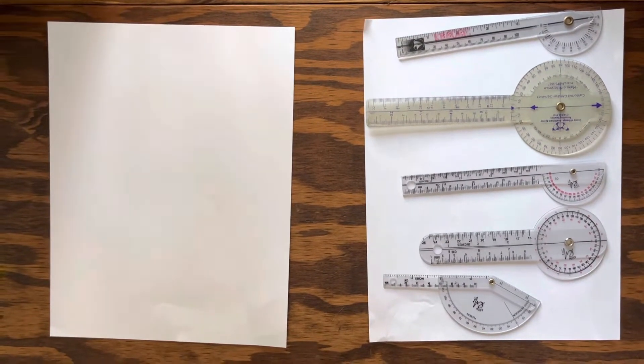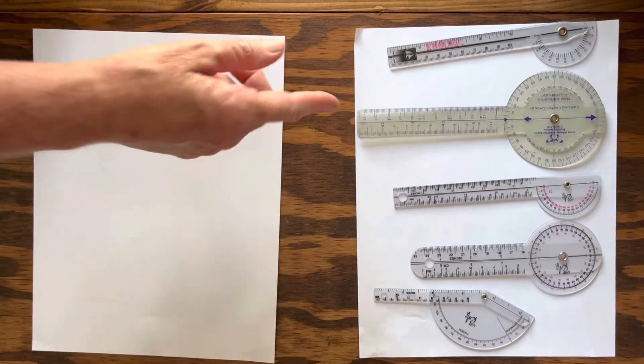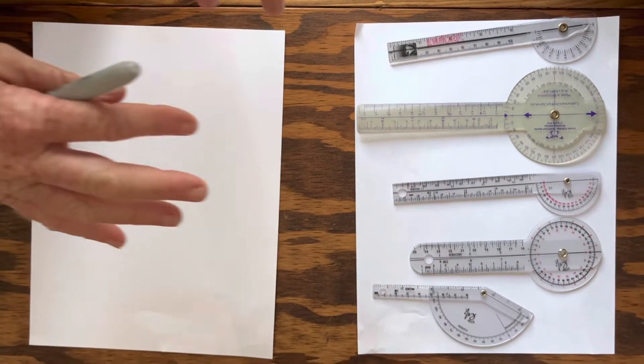Okay you guys, for this assignment we're going to use our goniometer. You see I have a selection of goniometers over here on the side. You can use whatever goniometer that you have on hand.